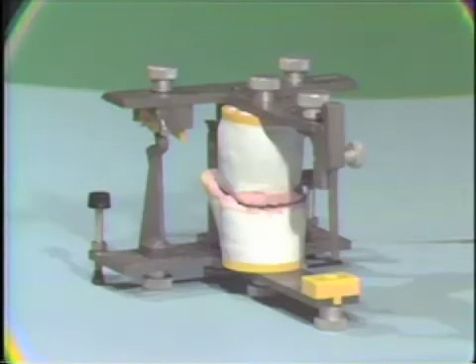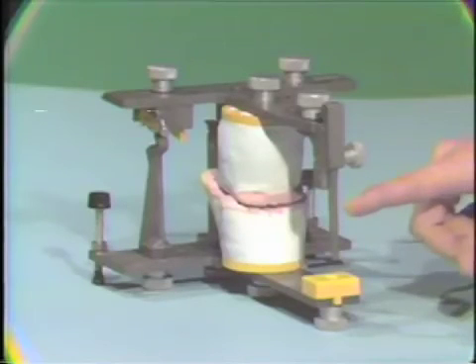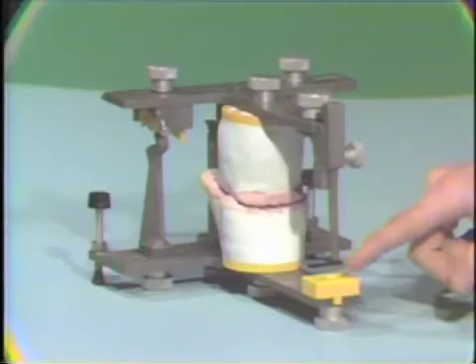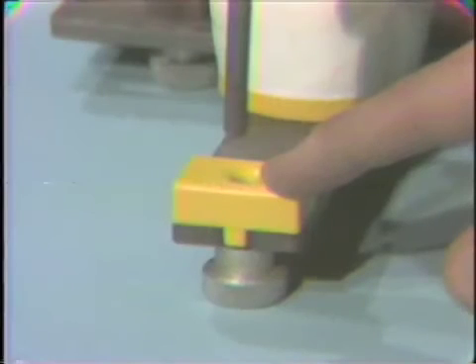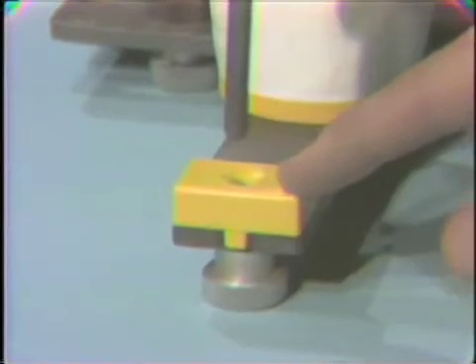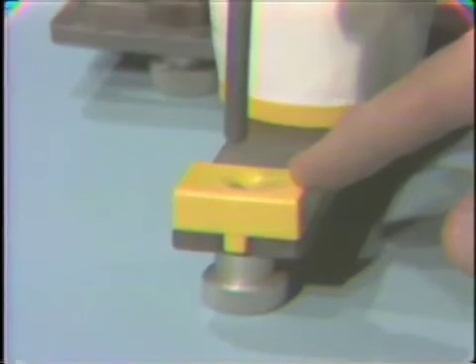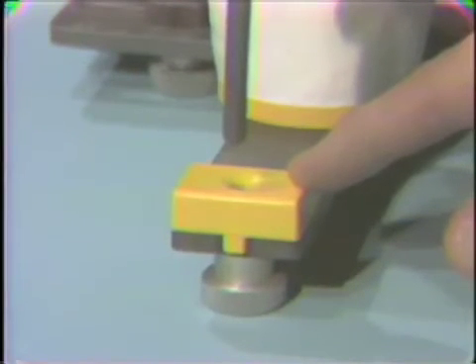Now that we've got both our upper and lower clutches mounted to our articulator, we're ready to begin programming our condylar guide mechanisms. First thing we'll want to do is make sure that we raise our incisal pin off the incisal table so there's no contact. This will cause deflection when we're doing our programming, and we don't want this to occur. We want all our contact to be just on the clutch surfaces themselves.